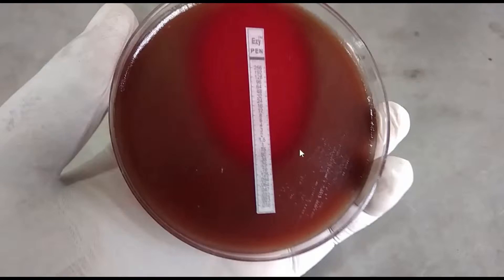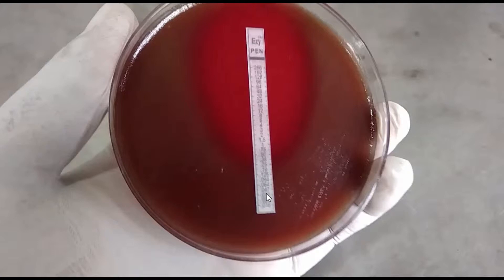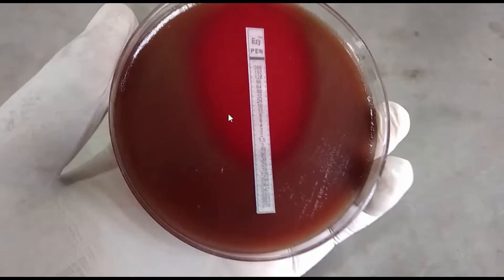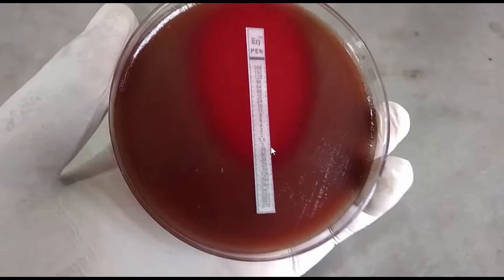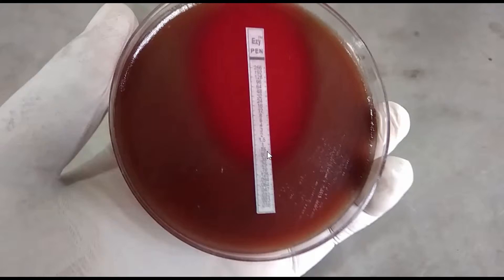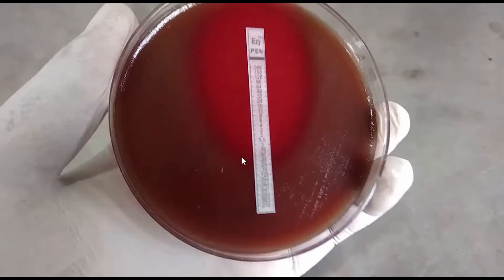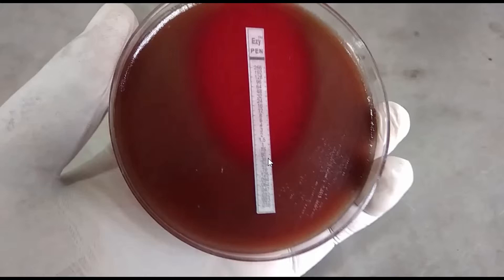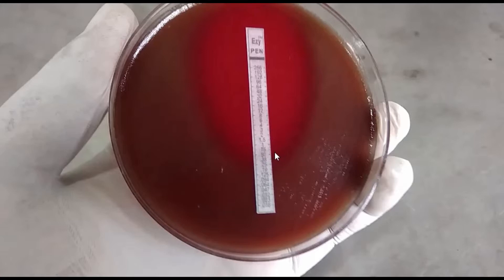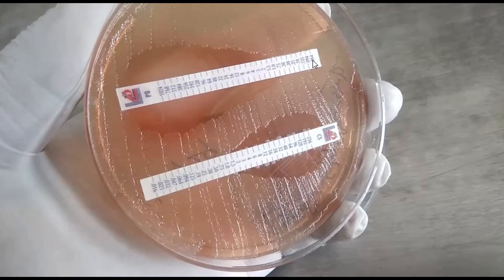We have this type of appearance after overnight incubation. This one is the penicillin strip. Here you can see the elliptical zone of growth inhibition. Now read the MIC where the ellipse intersects the scale — at this site. Therefore, the minimum inhibitory concentration, that is MIC, of this penicillin is 0.5 microgram per ml.